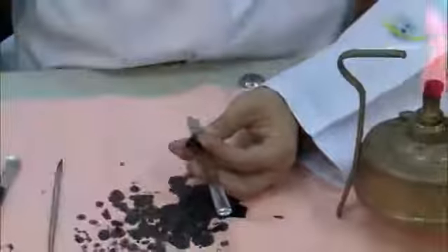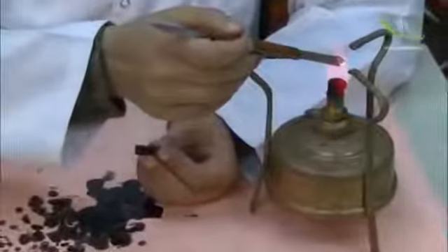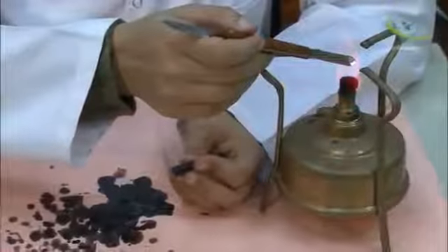Then with the back of the knife we will make the fossa.